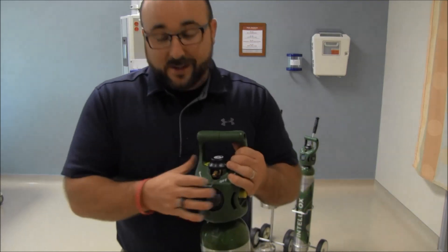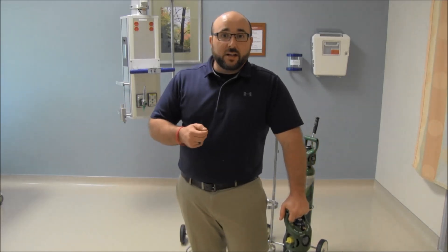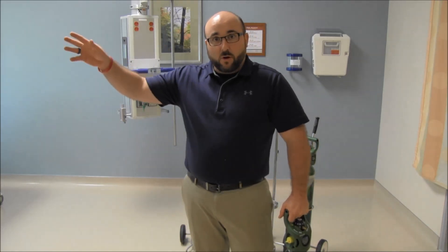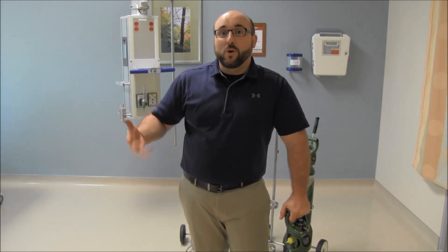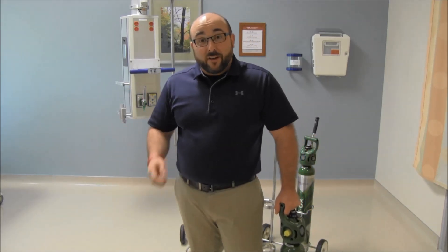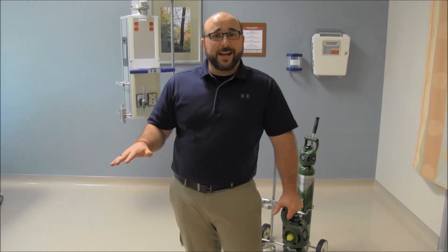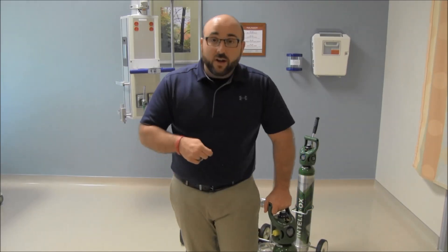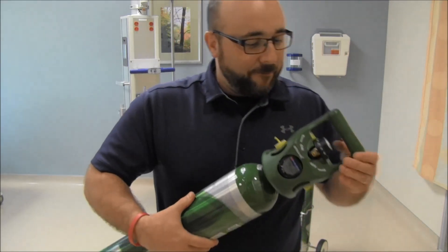It actually makes sound and gives you an alert when it's getting low. No more bringing your patient back from CT or taking them from upstairs to the floor, leaving them on the tank too long, and having it run out. With a standard tank the next alarm you'd hear is the pulse ox going off because their saturation dropped — we don't want that. This thing will alert you that the tank is getting low with a little beep.